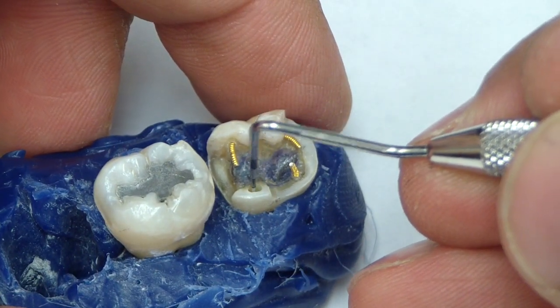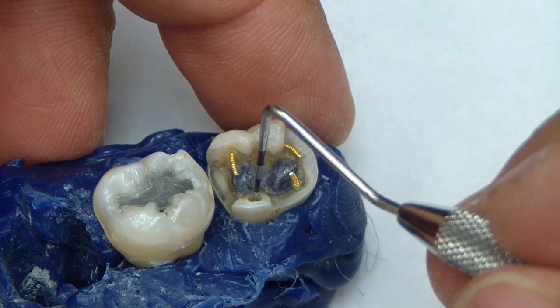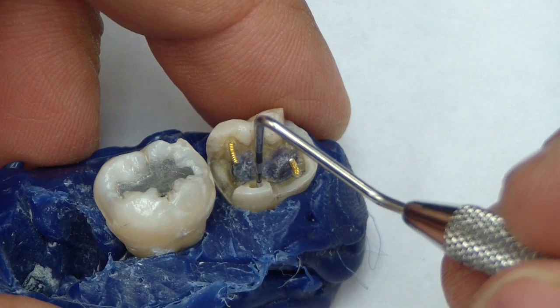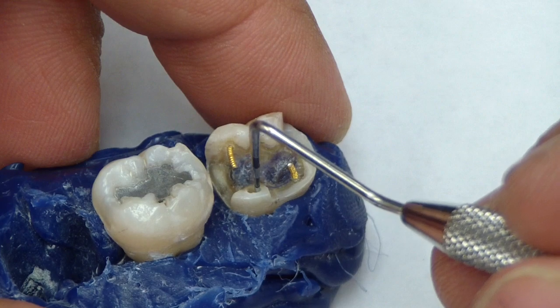This is an amalgam pin, also called a cleat. There's a literature article I've referenced that shows retention when it's approximately 1.5 to 2 millimeters deep and 1 millimeter in diameter. This is more of a cleat.